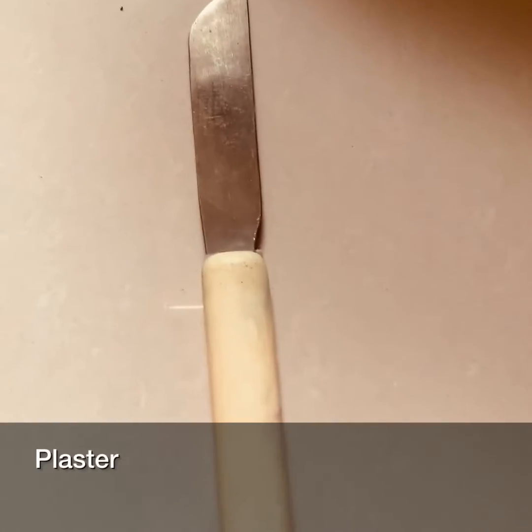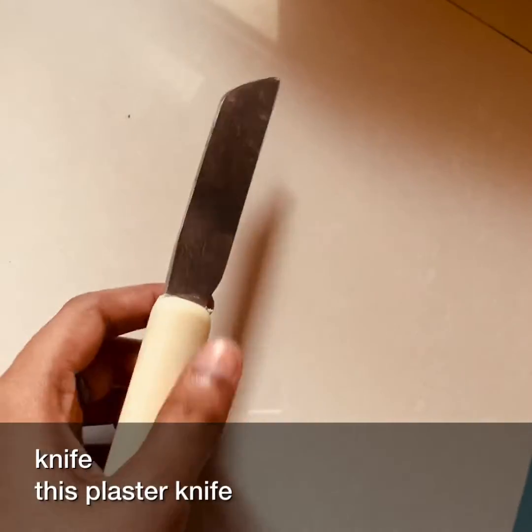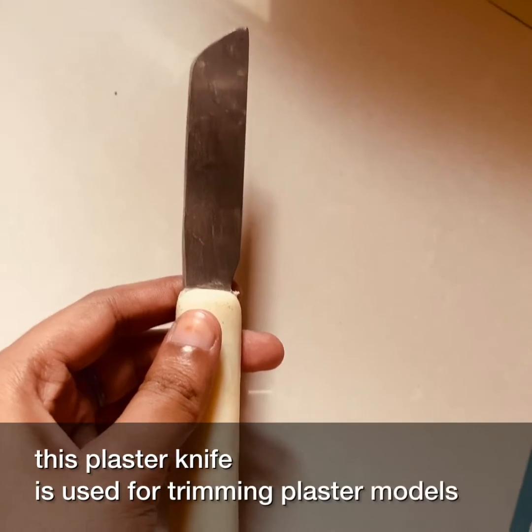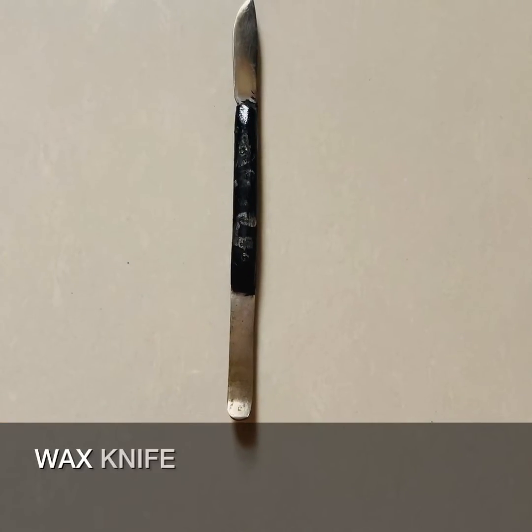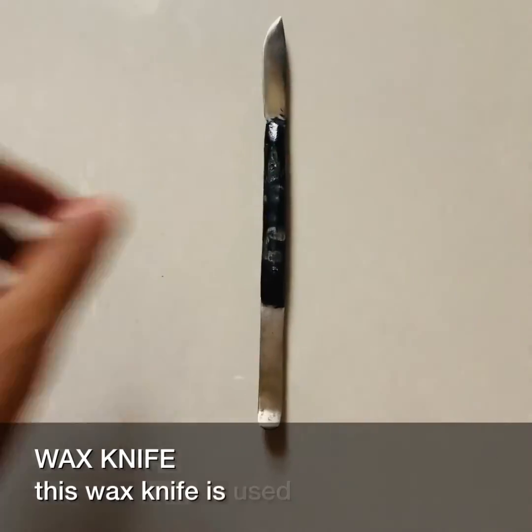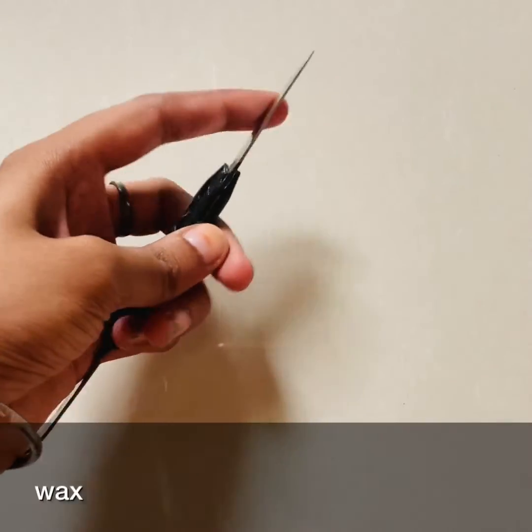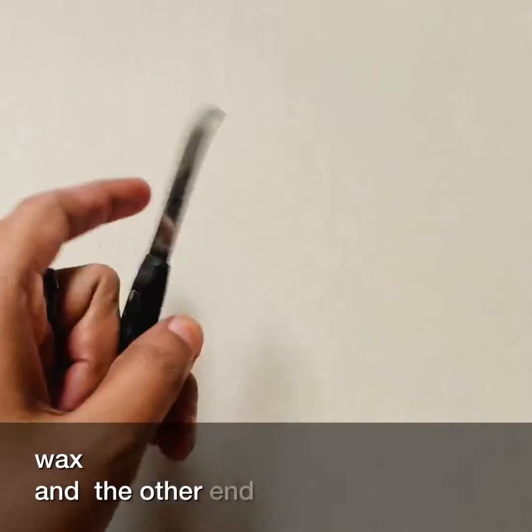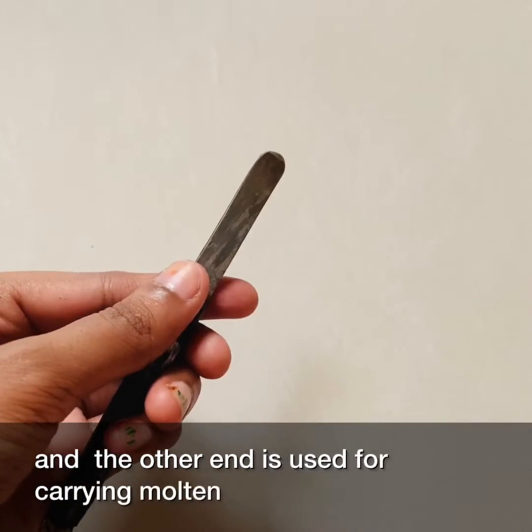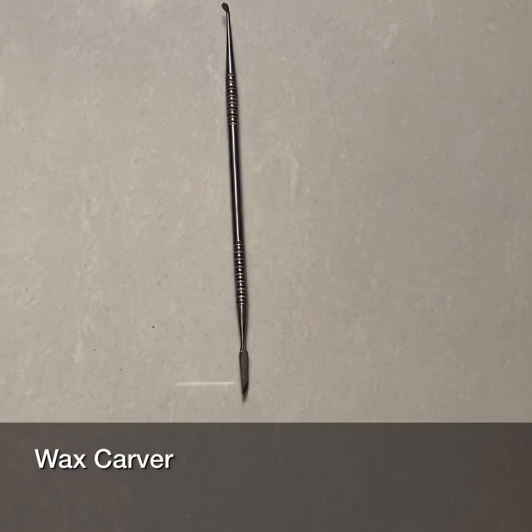This is a plaster knife. This plaster knife is used for trimming plaster models. This is a wax knife. This wax knife is used for cutting wax, and the other end is used for carrying molten wax. This is a wax carver.